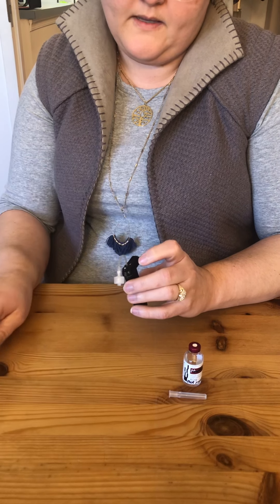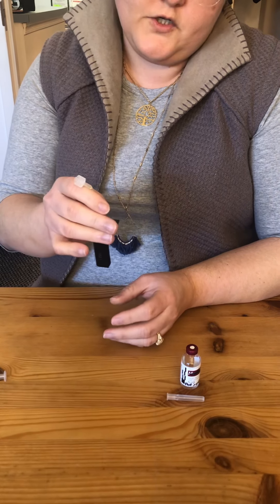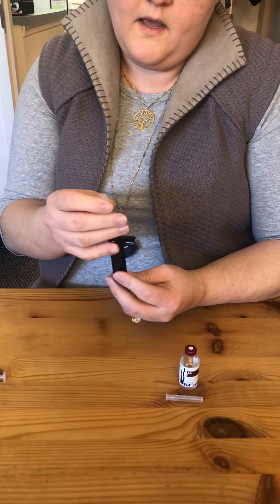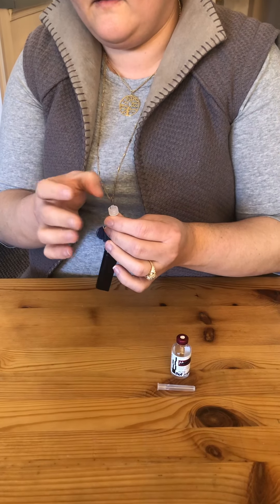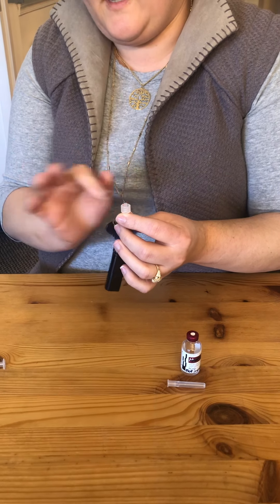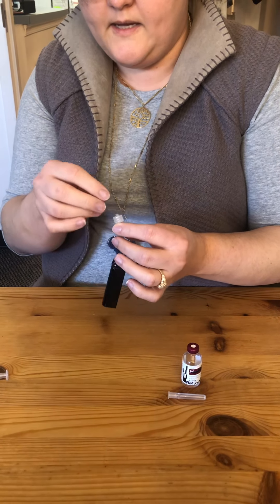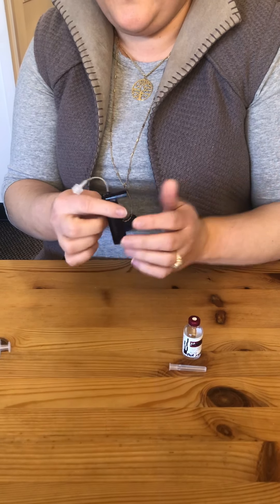Another tip: as you are filling your cartridge or filling your tubing, hold the tubing up so that if you do have any air left in there it's going to come through your tubing first. Before we had the T-lock, a lot of people would flick the old luer lock connector to get any bubbles trapped in there out. I find that the new connector is small enough that we don't get excess bubbling — it's a very small tight connection so I don't get bubbles there.